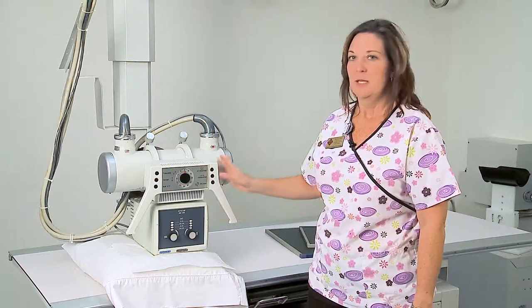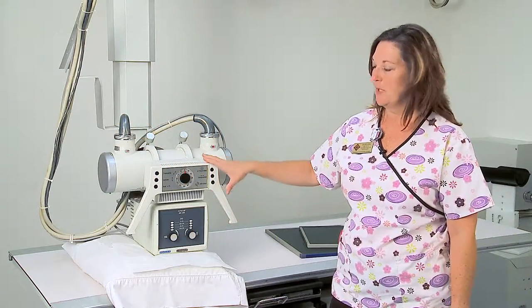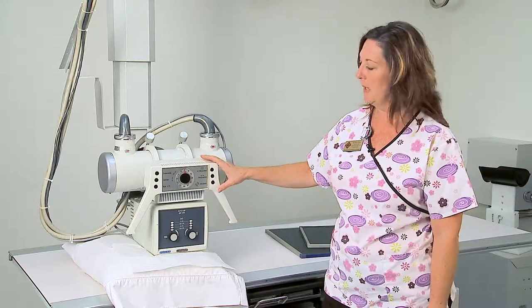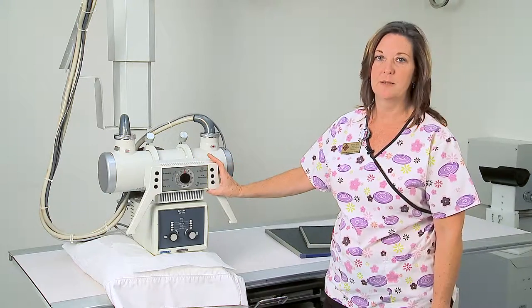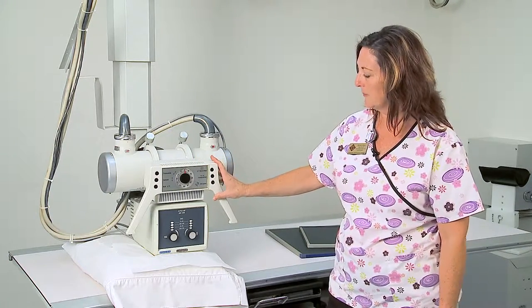Good afternoon. Today we're going to talk about the radiographic equipment and how to operate it accordingly and safely.